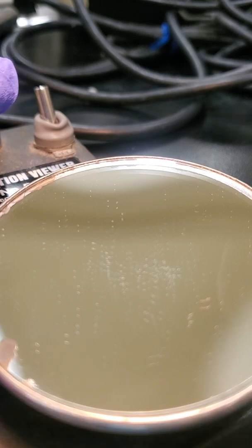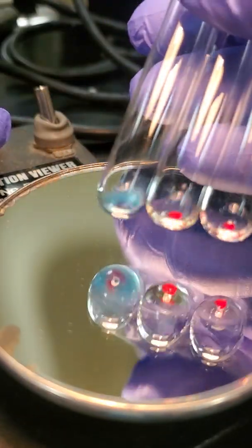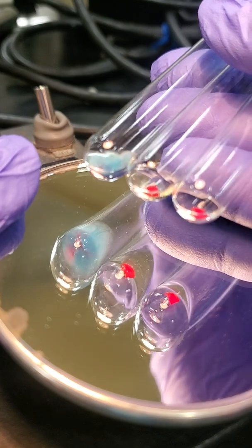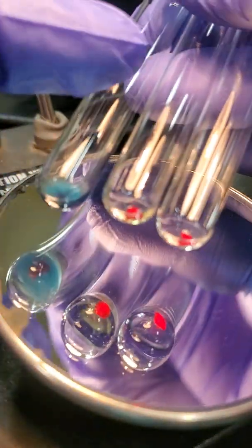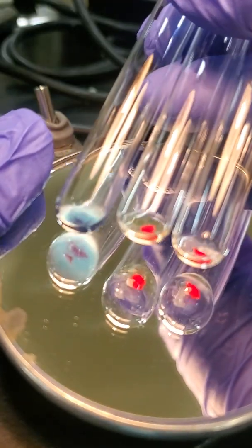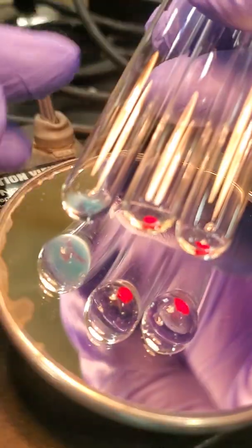So that was our forward typing. Let me show you guys these all together. So A, B, and D. A is negative, and then we've got those two 4+ reactions. Okay, so that testing confirms that our patient has the B antigen because our antisera bound to the antigen on the patient's red cells, and that the patient also has the D antigen.